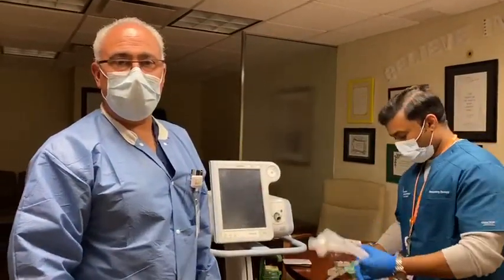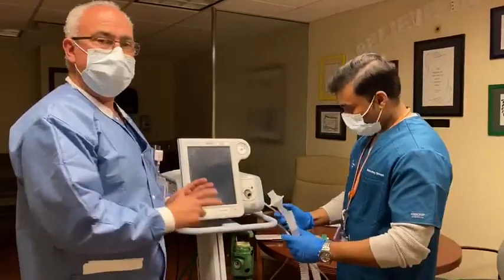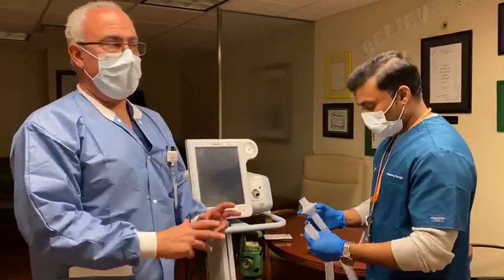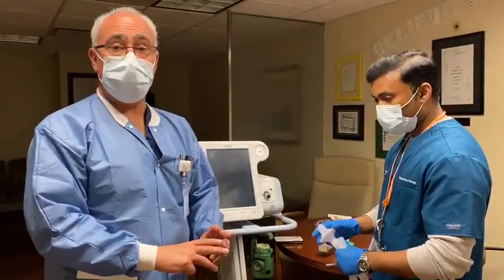My name is Dr. Hugh Kassir, and I'm a pulmonologist at Northwell Health. We're going to demonstrate how to use the V60 BiPAP machine as a pressure-controlled ventilation in patients who have COVID-induced lung disease and patients who do not, so it could be used on everyone.